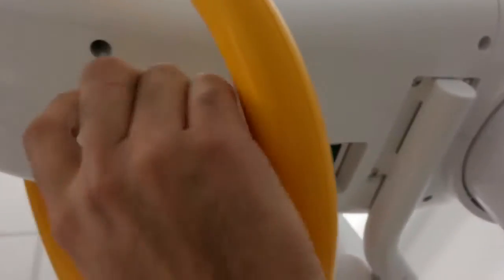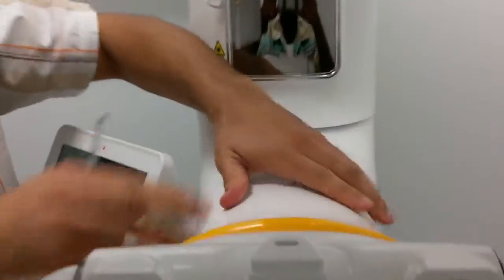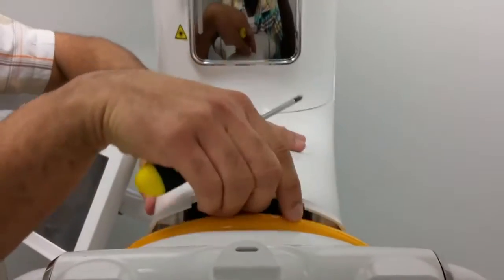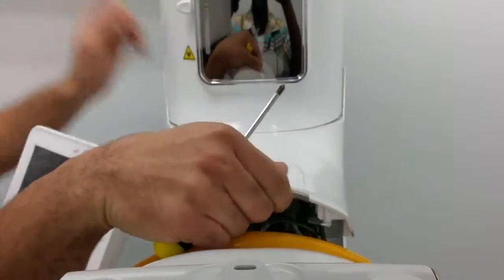We're going to be removing four screws - one, two, three, four - to loosen the top piece. We'll slide out like so.